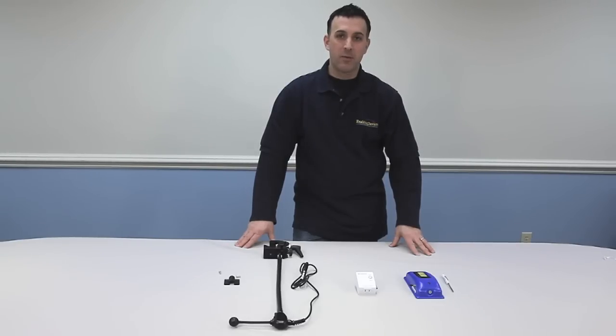Hi, Vinny Lovody here, tech support at Enabling Devices. Today I'd like to talk to you about one of our most popular switches, the ultimate switch, item number 1671. So let's get started.